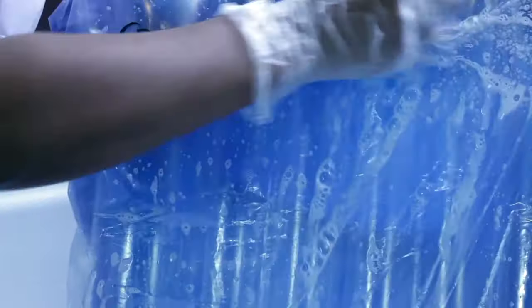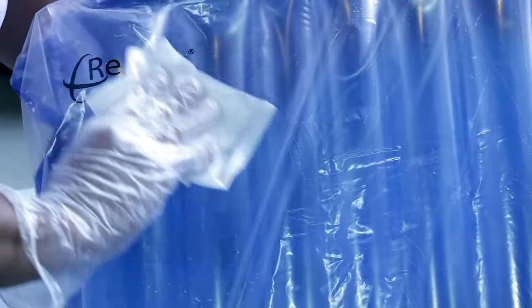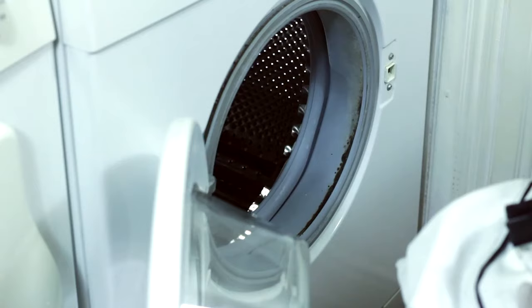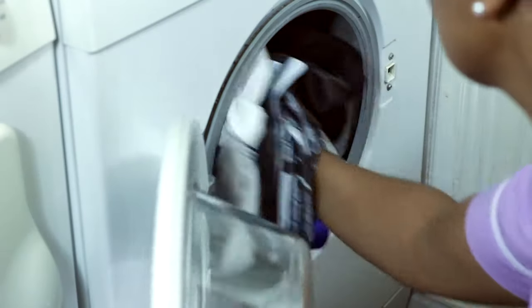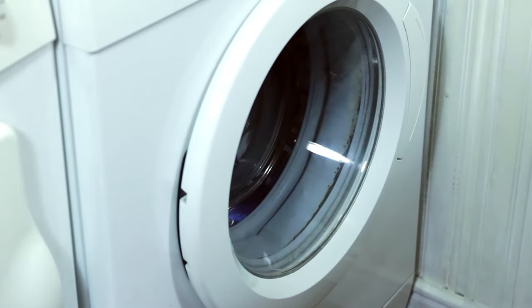If required, the Repose Contour can be easily washed with soap and water. First, wash down using detergent, then rinse with fresh water and allow to dry. If necessary, it can be decontaminated with a chlorine-based disinfectant, then rinse again in clean water and allow to dry. The cover can be laundered in a washing machine at up to 75 degrees Celsius with both zips open. Allow the contour to air dry.